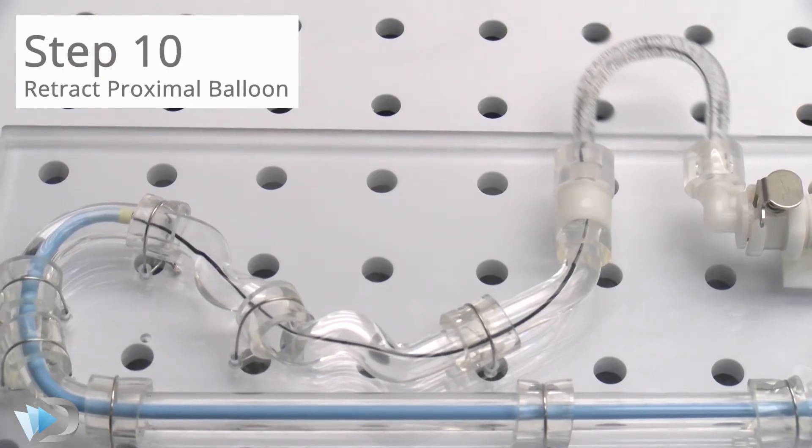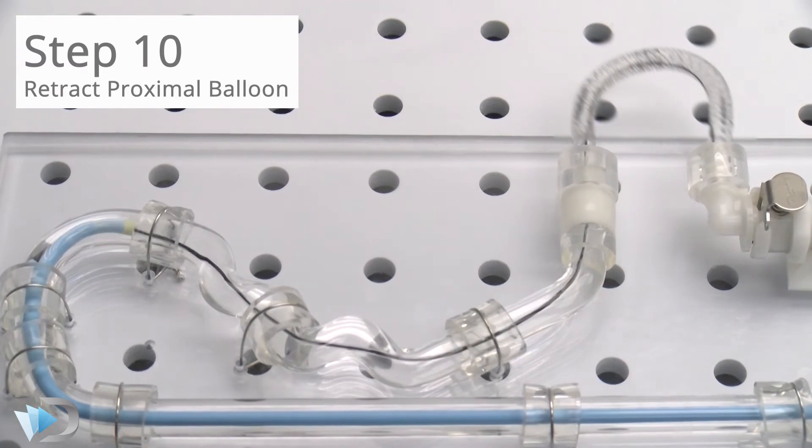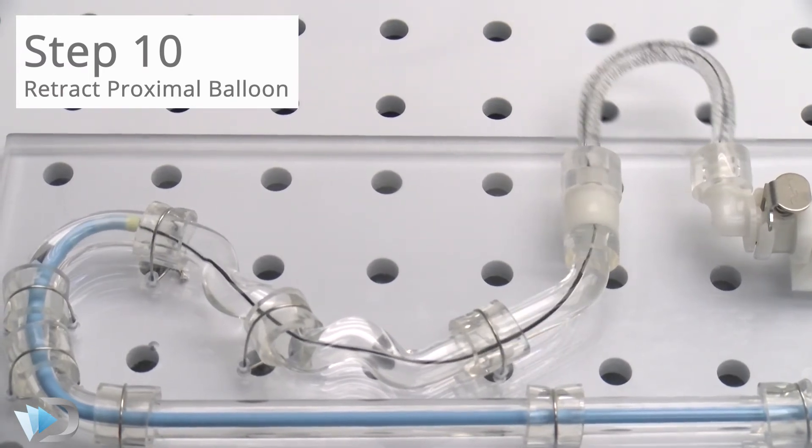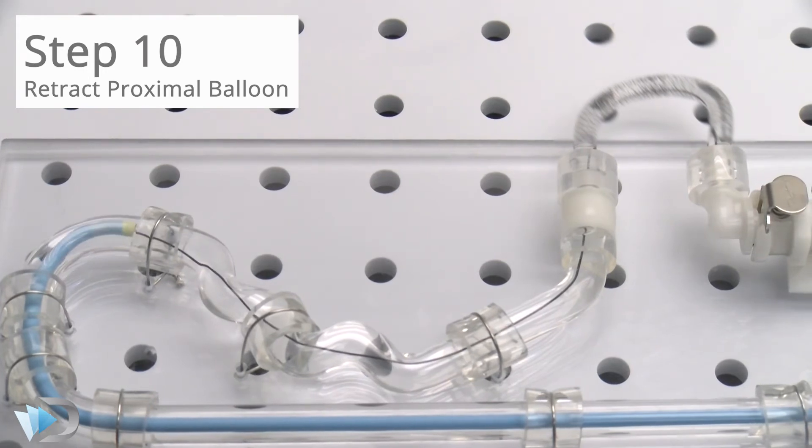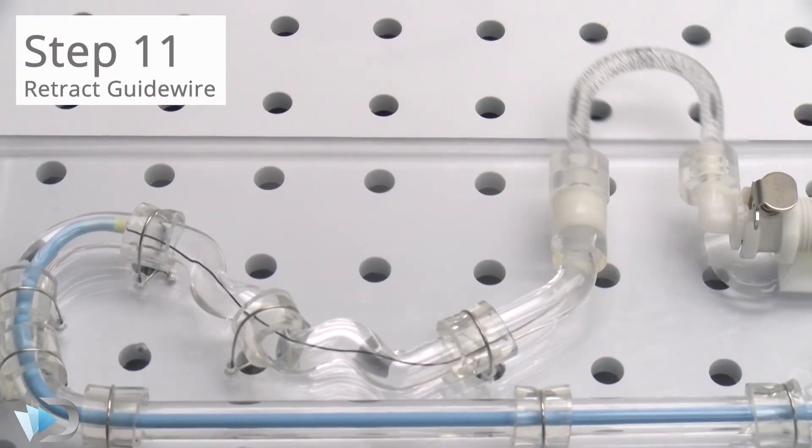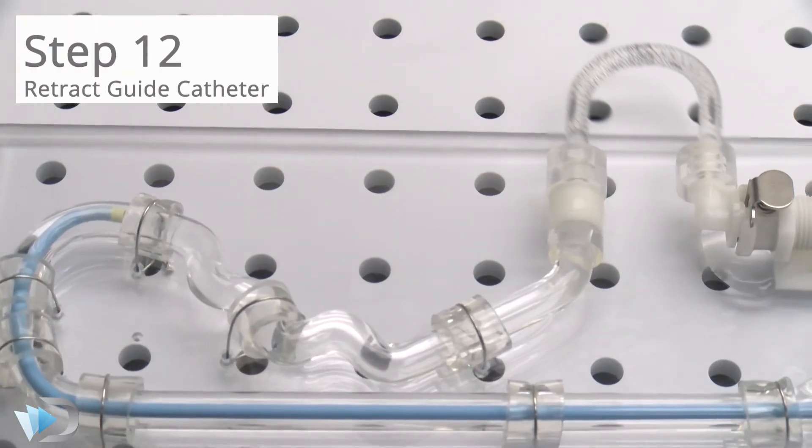Expanded, and the balloon catheter is retracted from the system. Lastly, the guide wire is retracted, followed by the guide catheter.